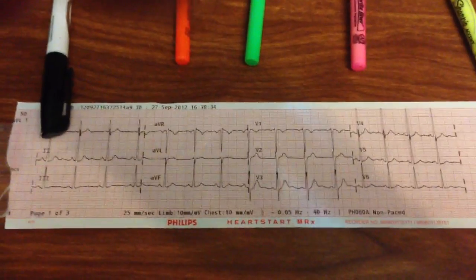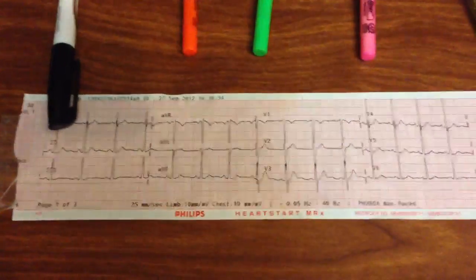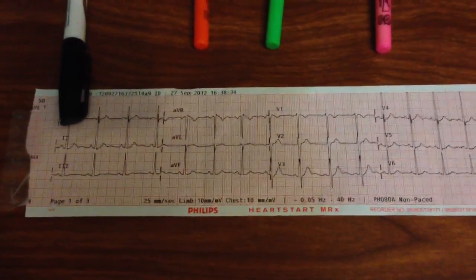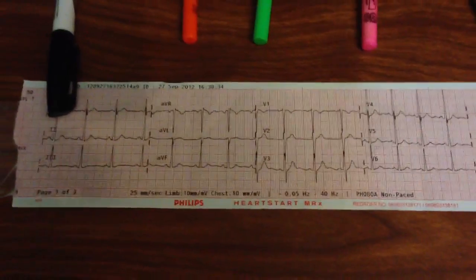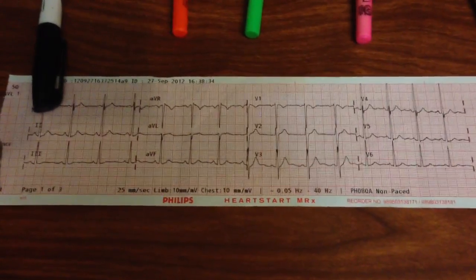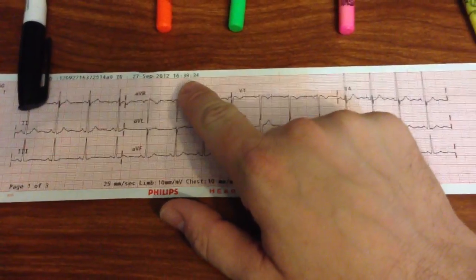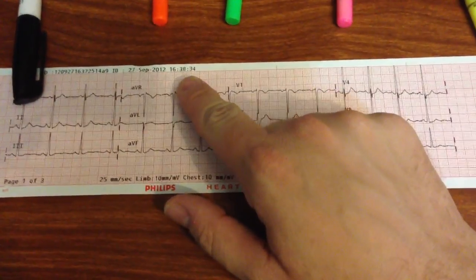Good day everyone, this is Chris with the Ancient Scholar. Today I'd like to spend a little time looking at the normal 12-lead ECG. This is somewhat of a ghetto setup, I admit, but I just want to show you a real 12-lead — one that was performed on me today, 27 September 2012, at about 16:38.